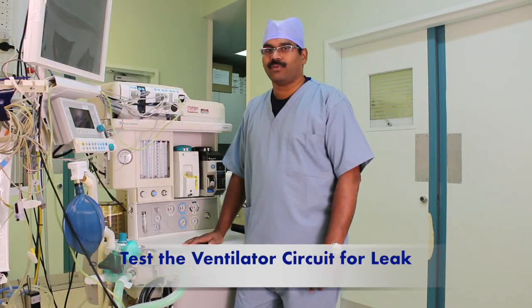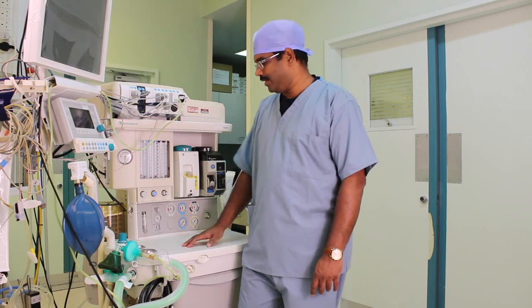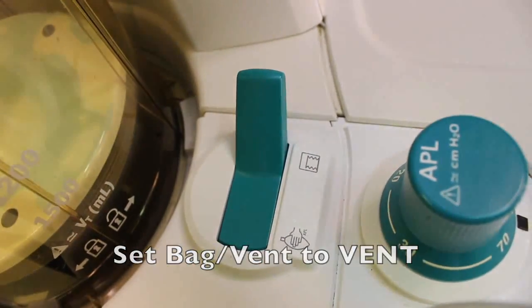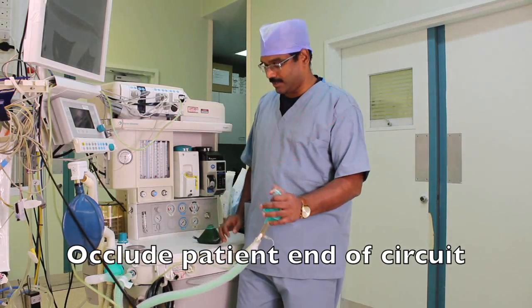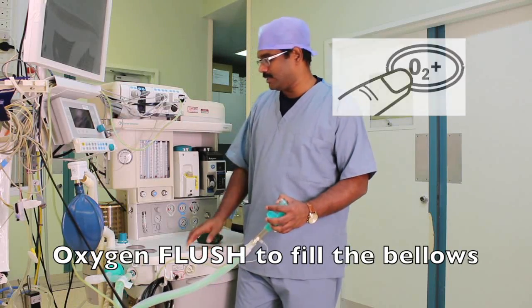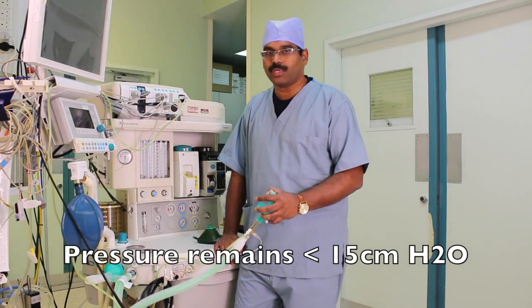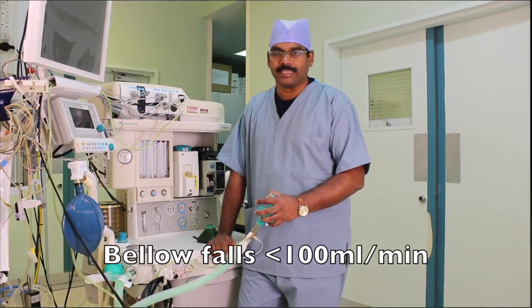The next step is checking for circuit leak in the anesthesia machine ventilator circuit. The machine is currently in the off position. Select the bag selector switch to ventilator mode. Take the circuit, occlude the distal or patient end, and using the oxygen flush, inflate the bellows and keep the circuit occluded. Make sure that the pressure gauge shows less than 15 cm of water and the fall in the bellows is less than 100 ml per minute.